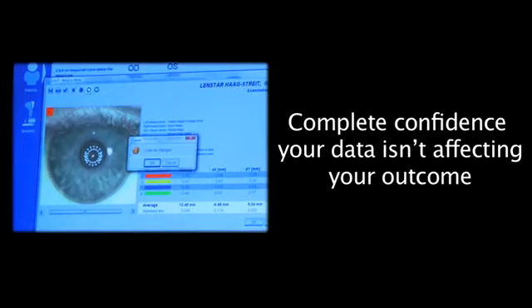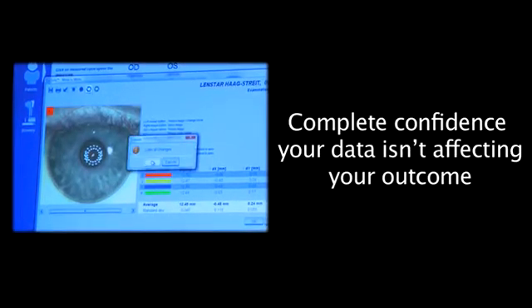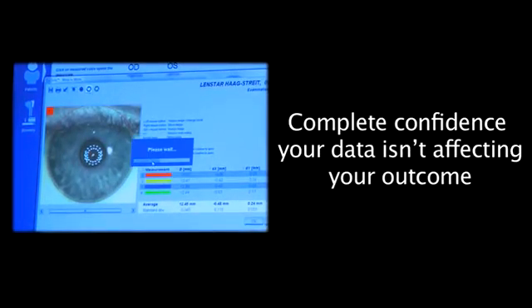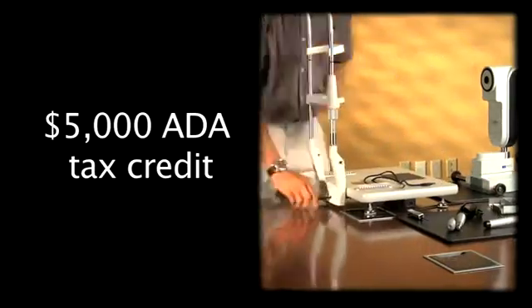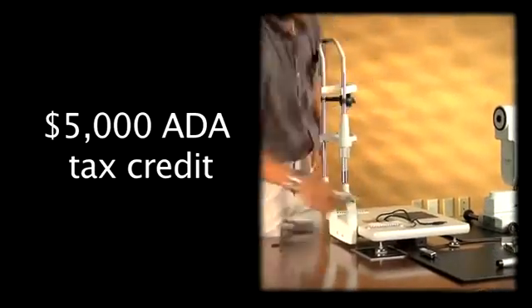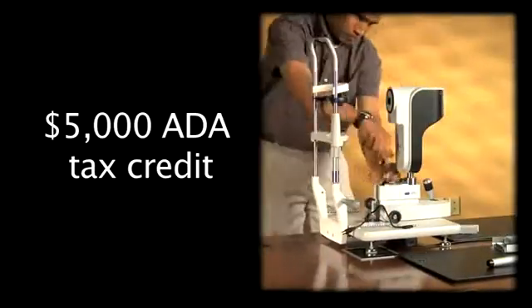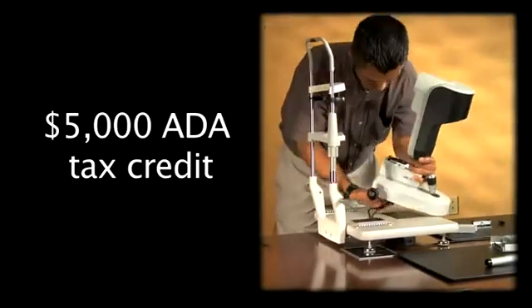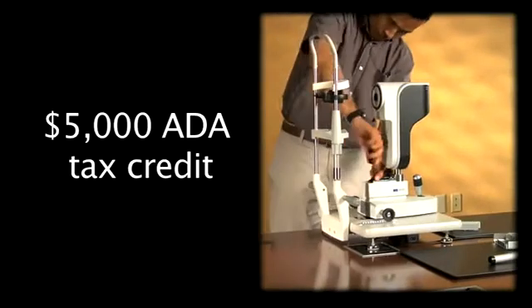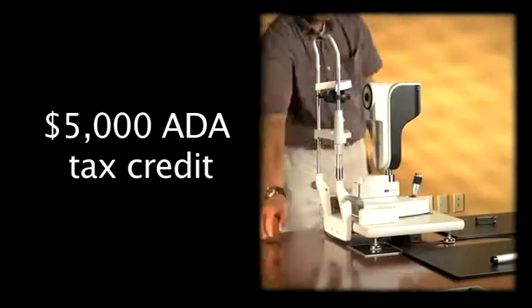Lens Star is a platform that gives you all the tools you need to do more premium IOLs. By the way, did you know that Lens Star now qualifies for up to five thousand dollars ADA tax credit? Ask us how.